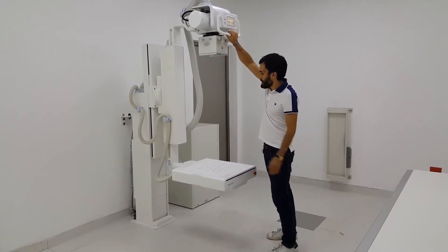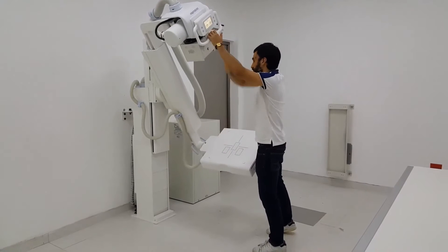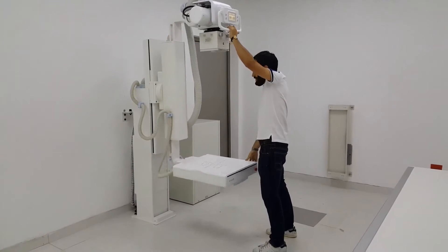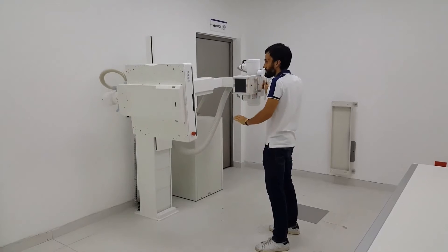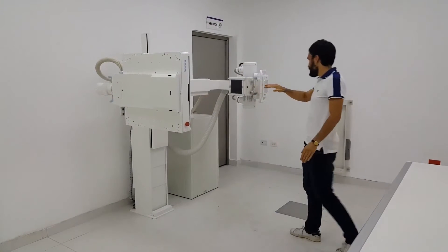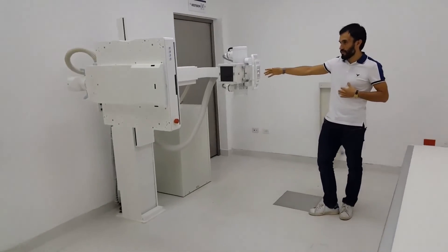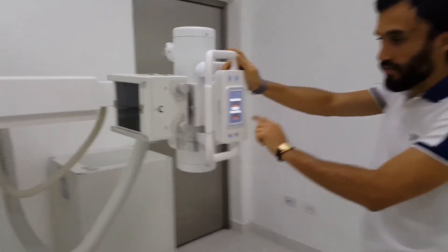I will make an example of how to do this movement in a horizontal way. If I just move the system like this, you can place it at 90 degrees. Come closer — we have the main control right here.